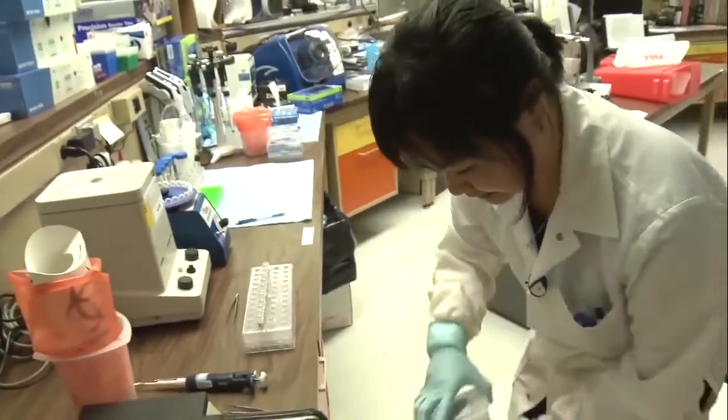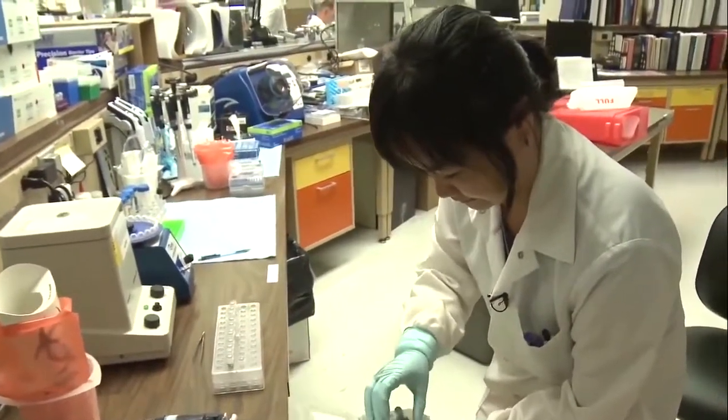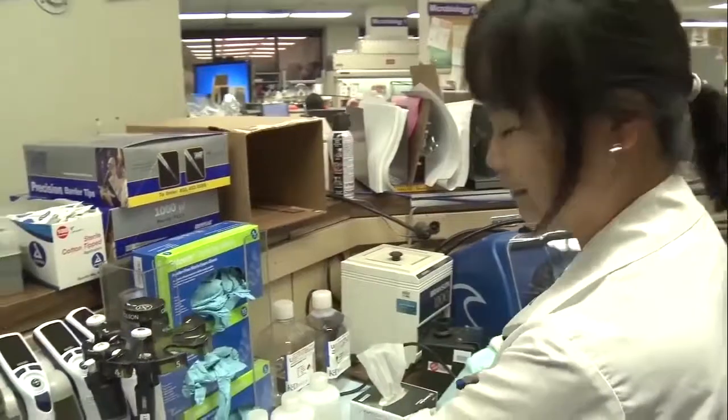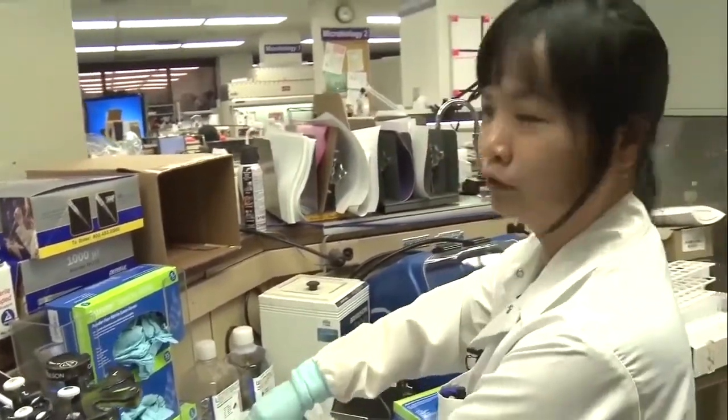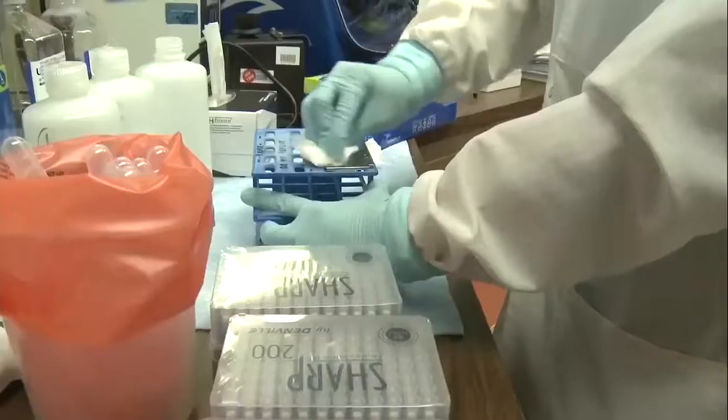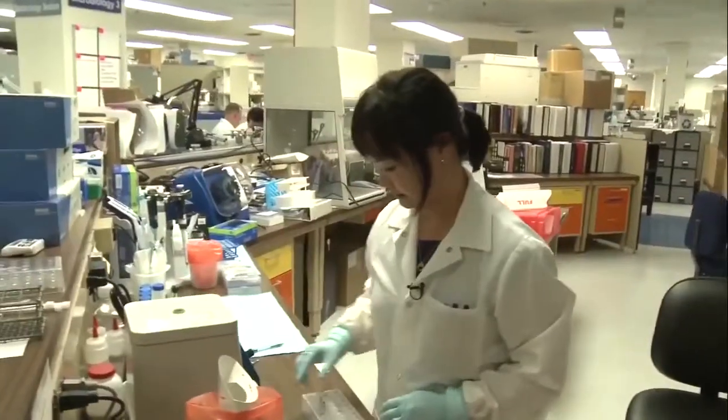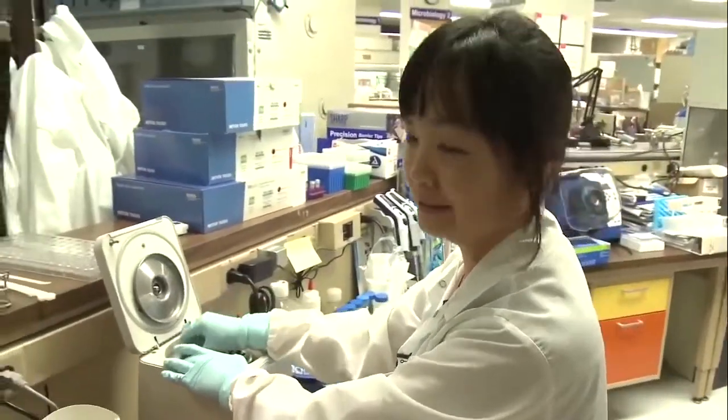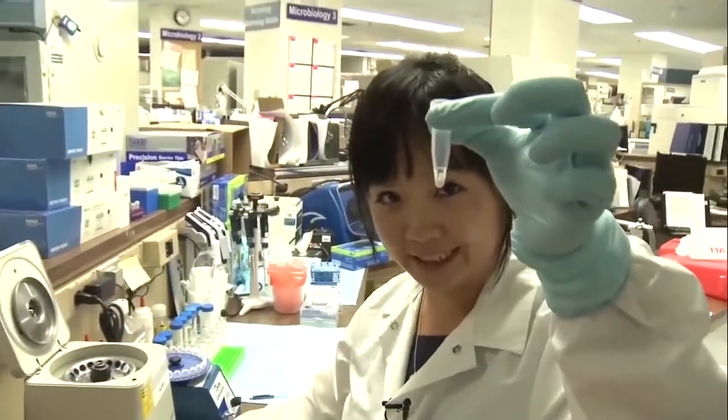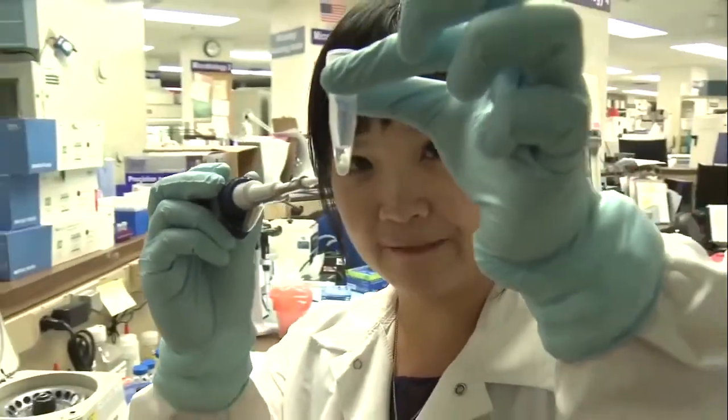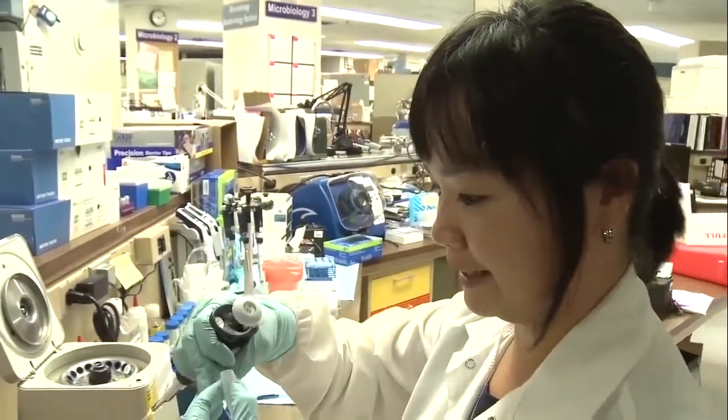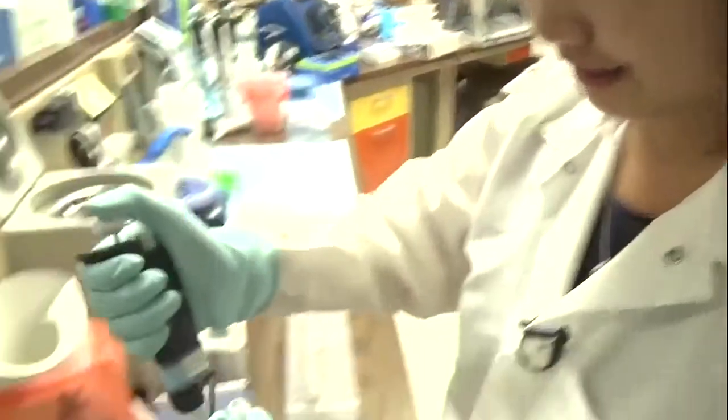Let's find a plate. So that yellow stuff that I just dropped off were the old proteins from the run before. So we have a clean plate. We extracted it, which takes about 20 minutes or so. So here it is, that's the extracted protein in there and then there's the squished up mold that's in there. But in the solution, that's where all the proteins are. So what we're going to do is just take one microliter. It's just like that much in volume. It's hardly anything. And then I'm going to spot it directly onto this plate.